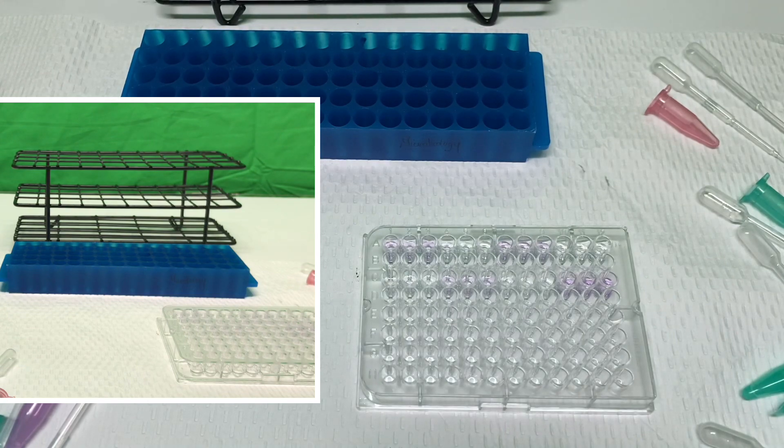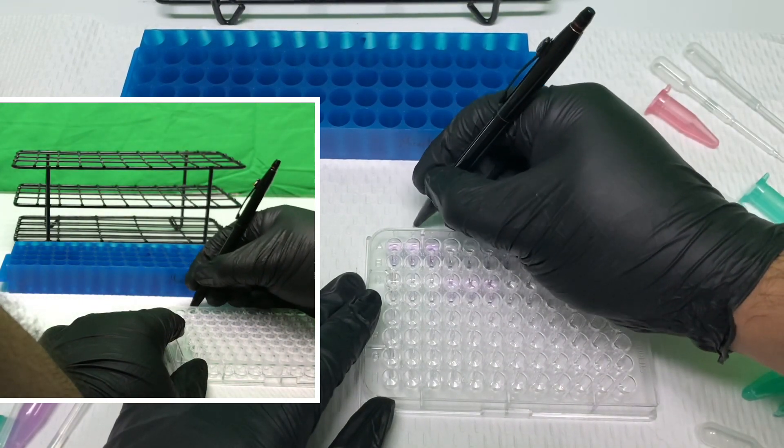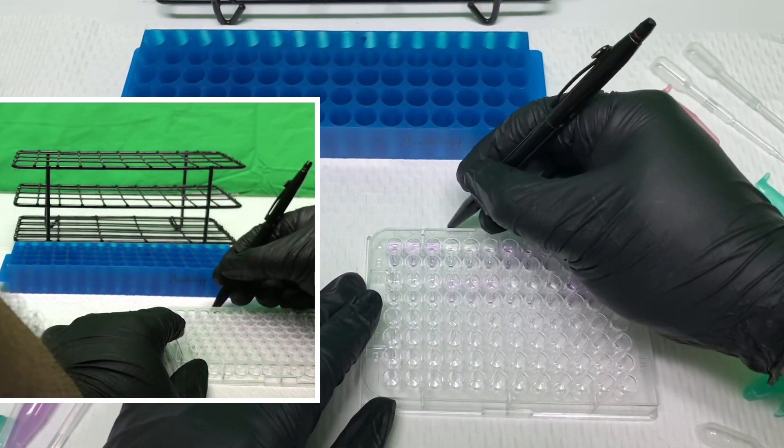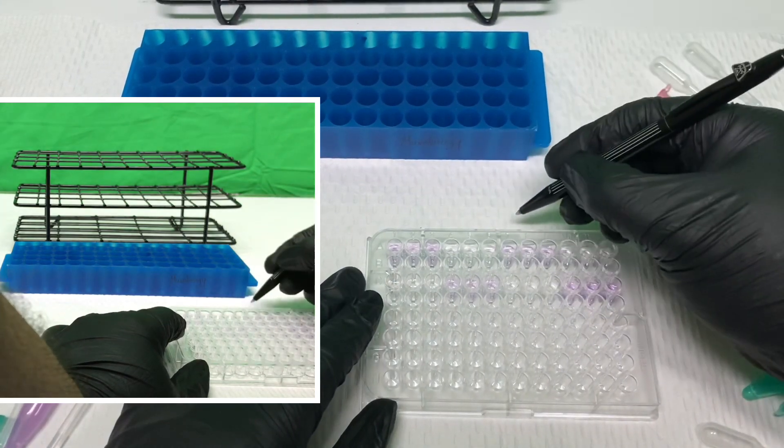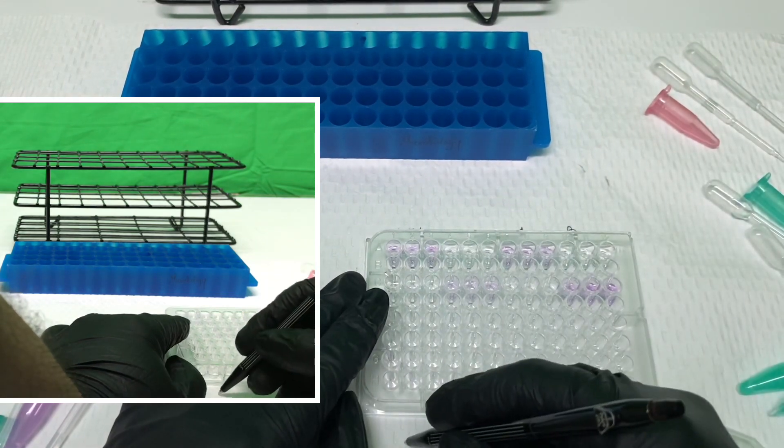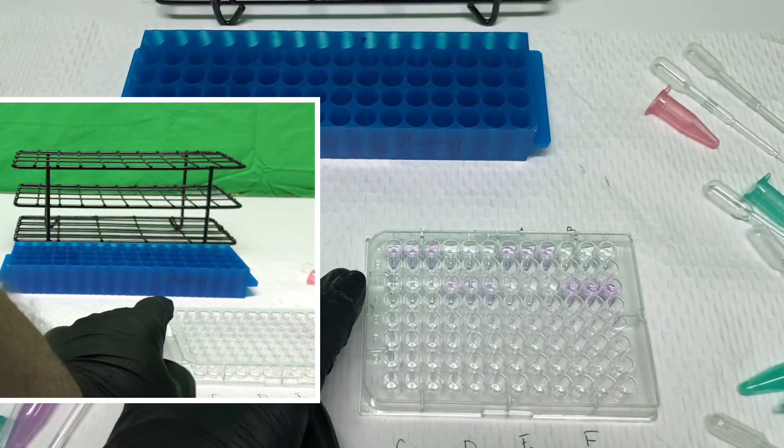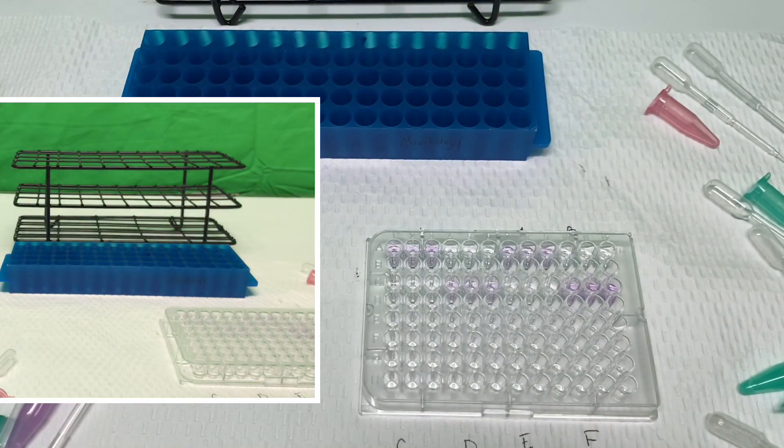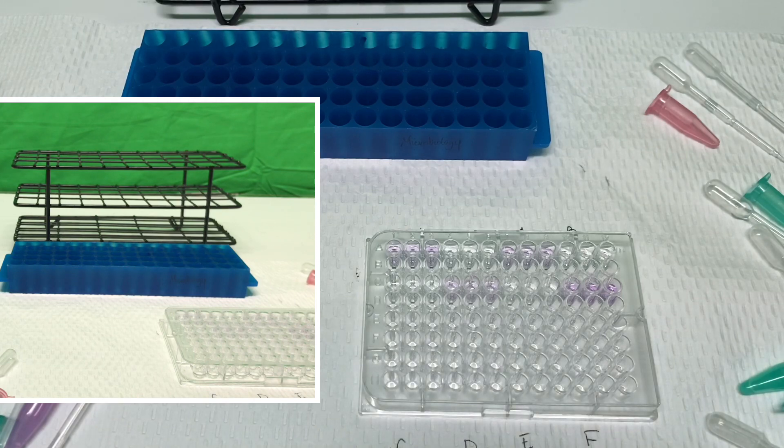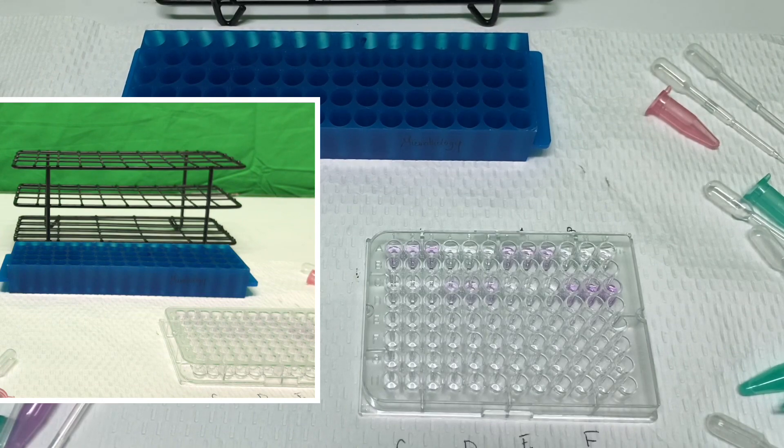Just as our clarification. We'll be able to provide that we had our positive controls up here, our negatives, and then we had patient A, B, C, D, E, and F. And that concludes the test. So now we'll have images to provide you so you can actually do the final analysis. Thank you so much. Thanks for joining me.